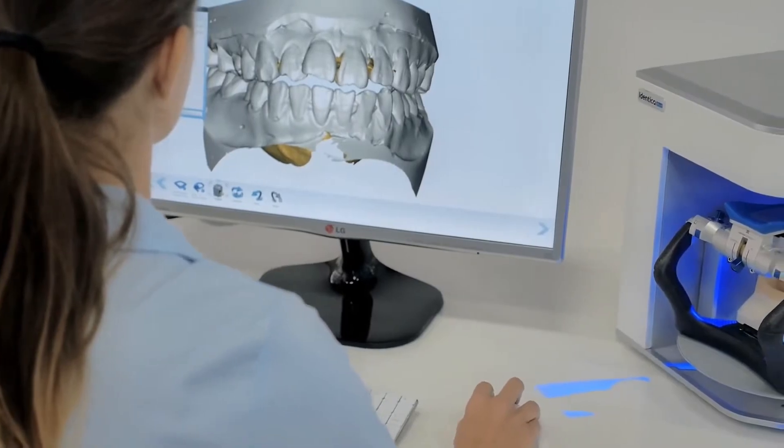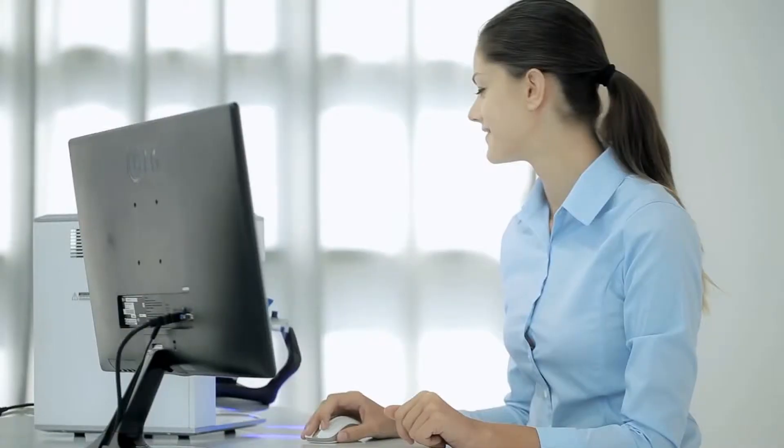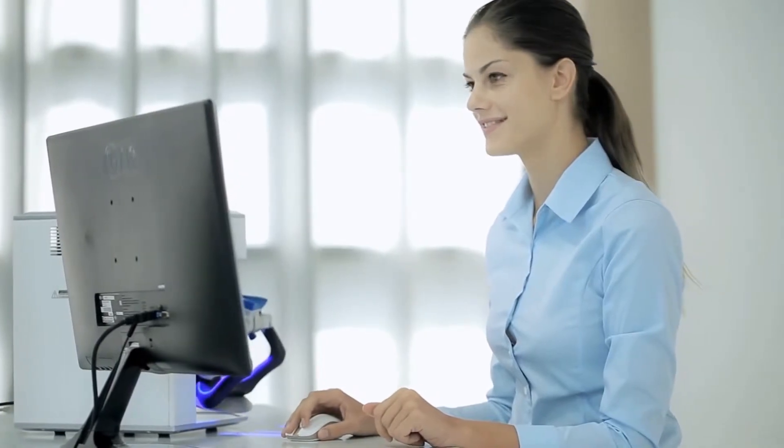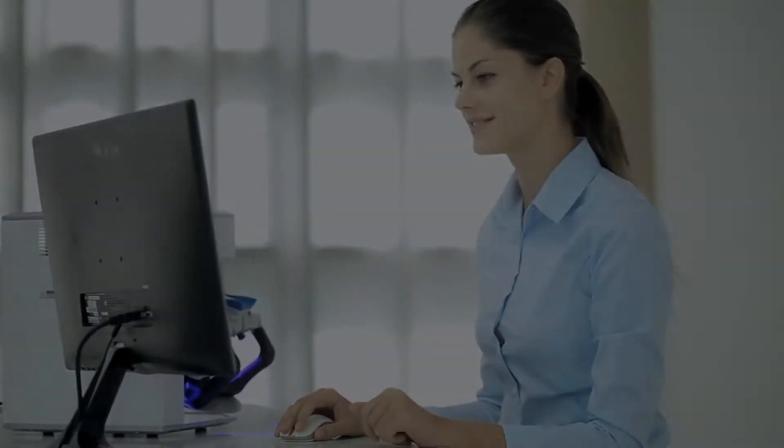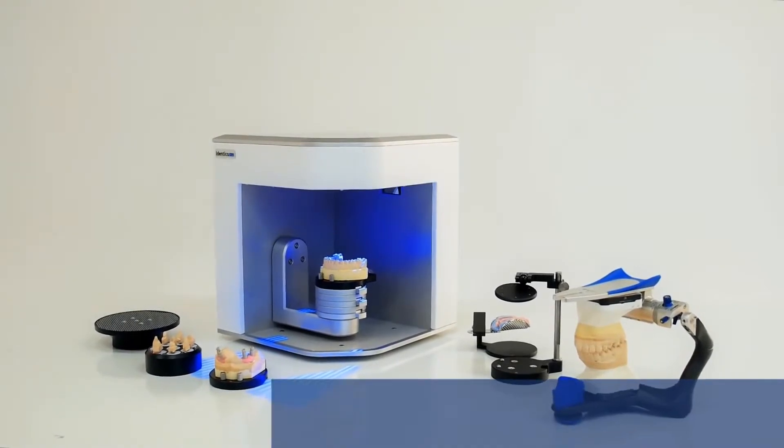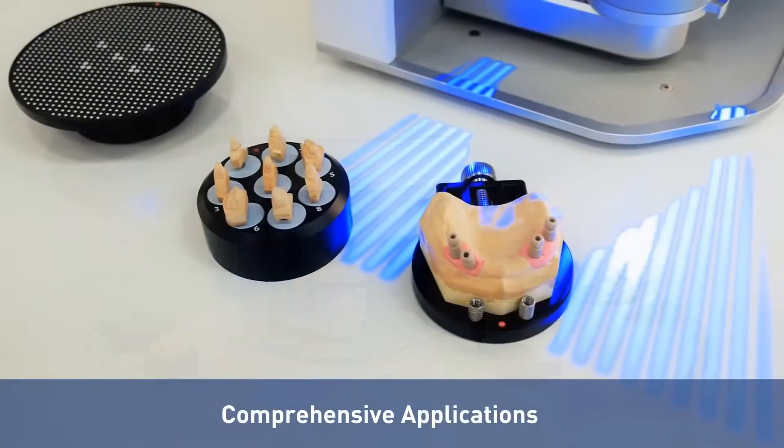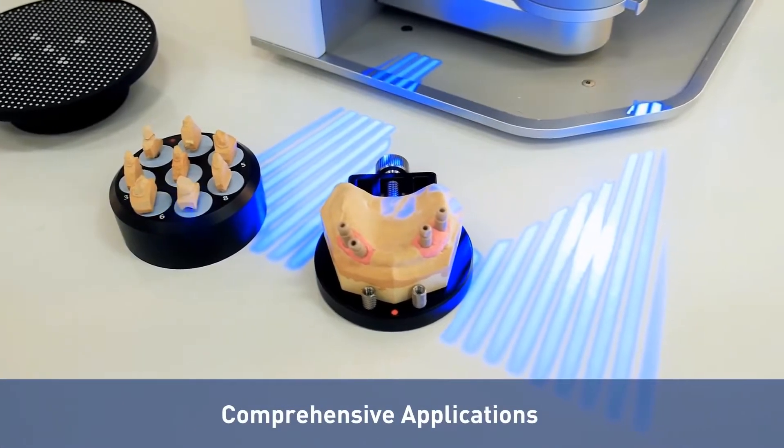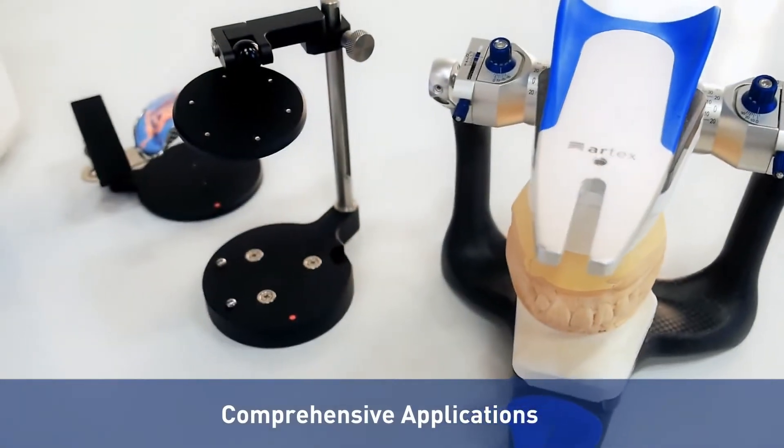Newly enhanced features have made the Identica Blue more convenient to operate than ever before. Thanks to a dedicated scanning jig, Identica Blue 2015 accommodates a variety of shape, type, and size of dental models.